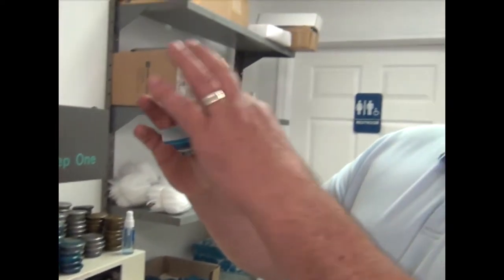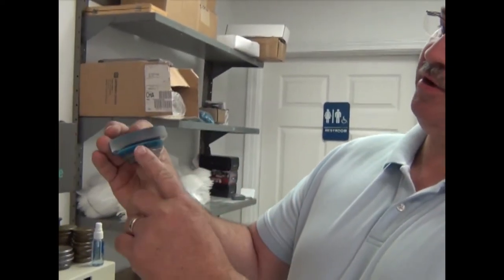This thickness here is how your lenses most of them start off — thick, like a hockey puck. When we get done, it will be down as thin as whatever your lens prescription calls for.